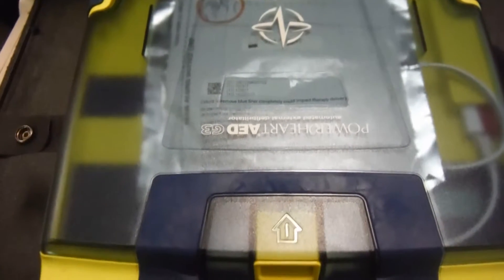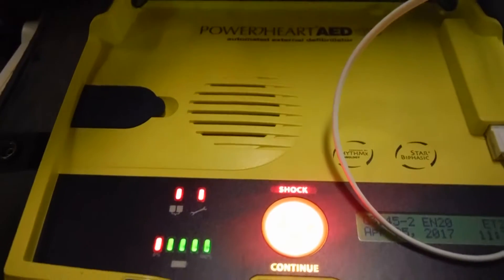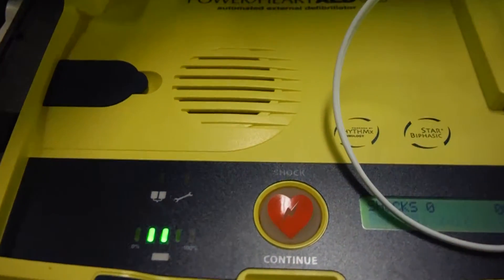You're looking at the 9300E501 of the PowerHeart AED unit. When you open the unit, this is how you know it's working — lights come on and you hear an audio cue.